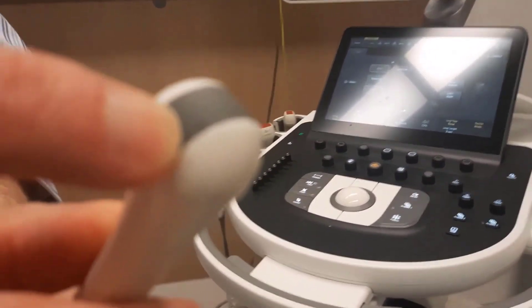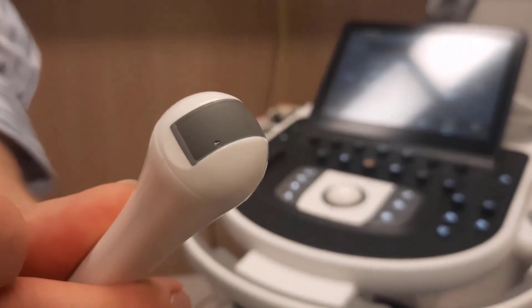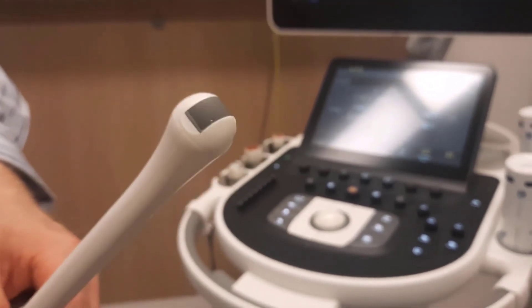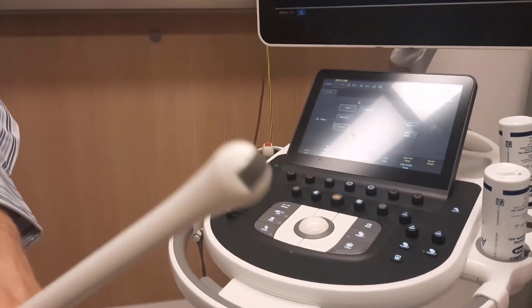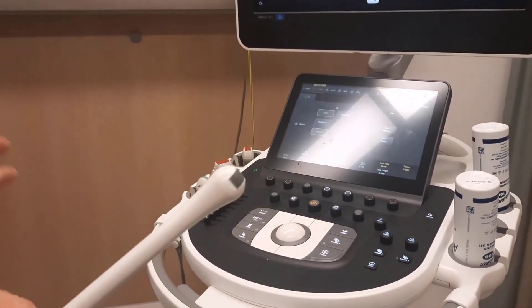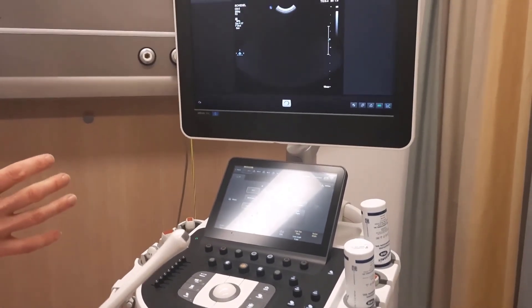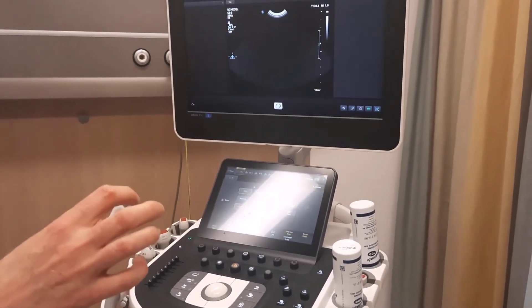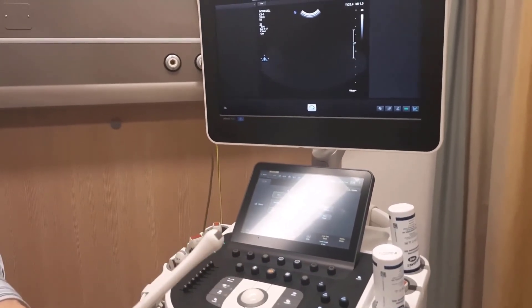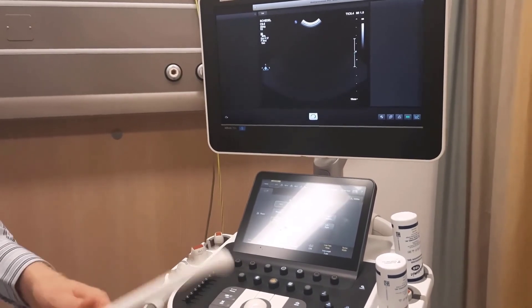There is a small hole in the face of the transducer. At that point, it can become electrically unsafe to work with. Transducers are driven with high voltage, and if the high voltage escapes at this point, it goes to the patient and can travel through the patient to ground — the patient can feel that.